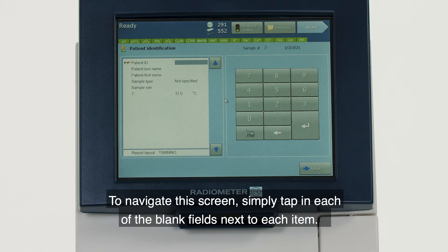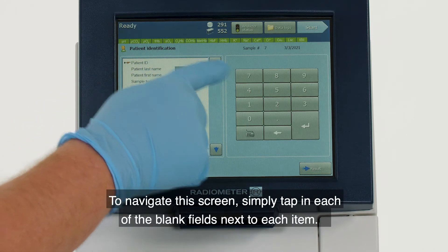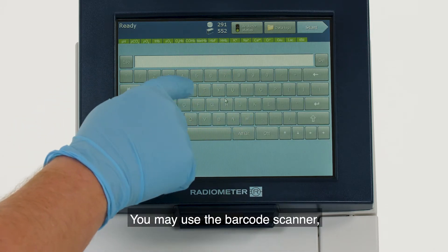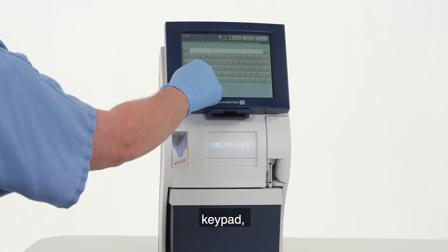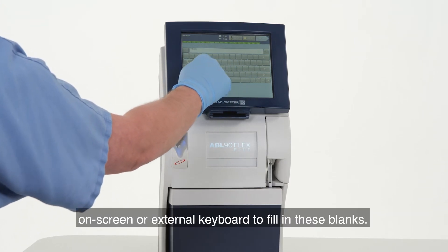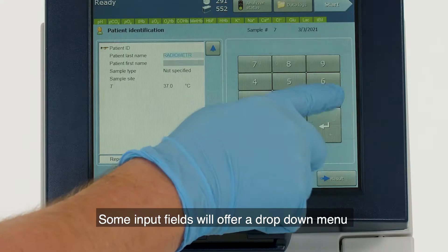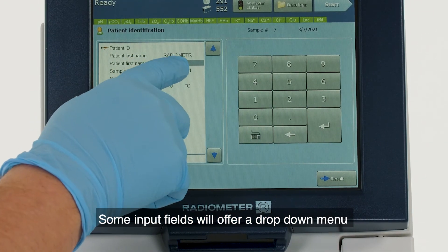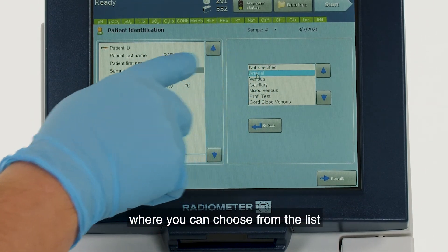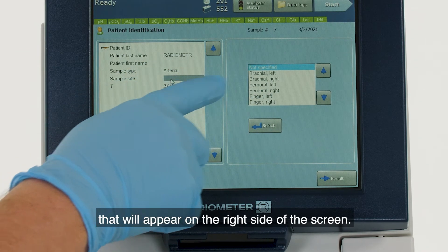To navigate this screen, simply tap in each of the blank fields next to each item. You may use the barcode scanner, keypad, on-screen, or external keyboard to fill in these blanks. Some input fields will offer a drop-down menu where you can choose from the list that will appear on the right side of the screen.